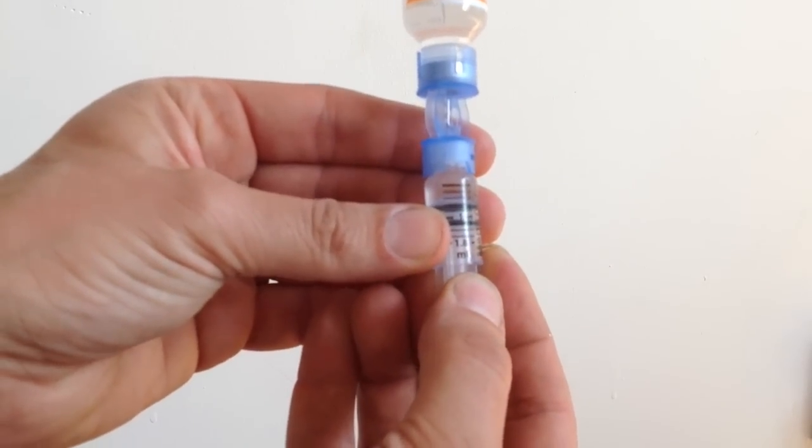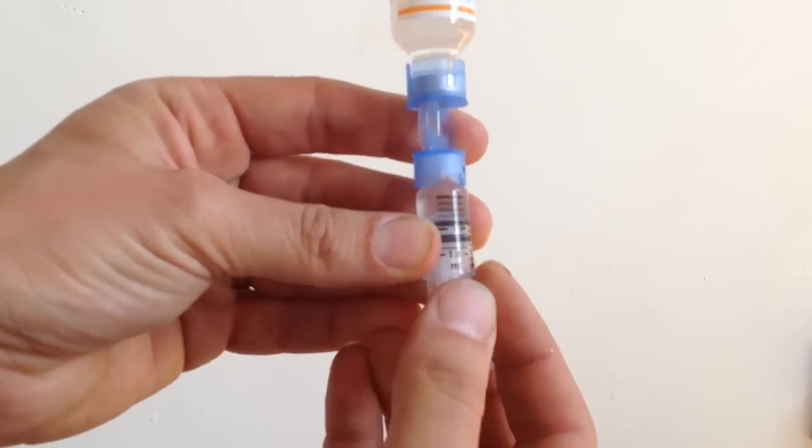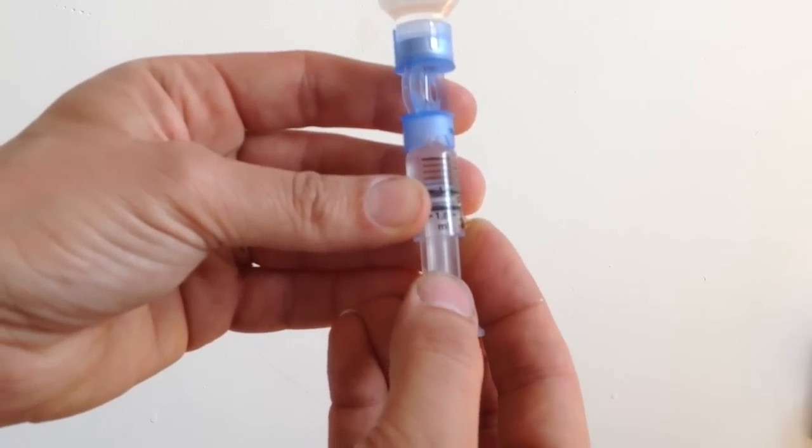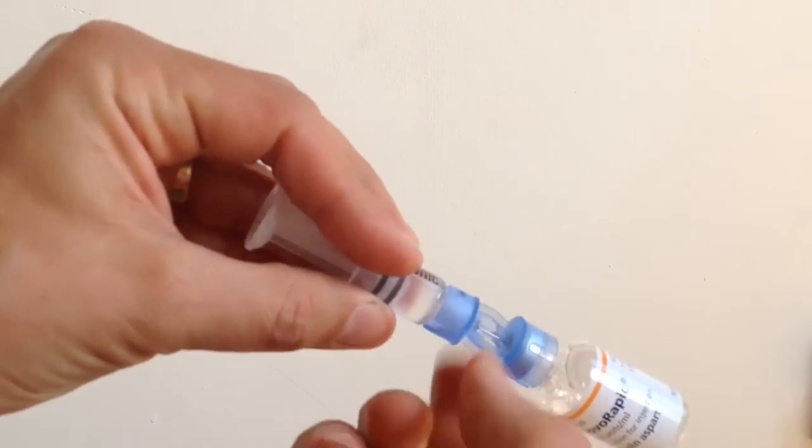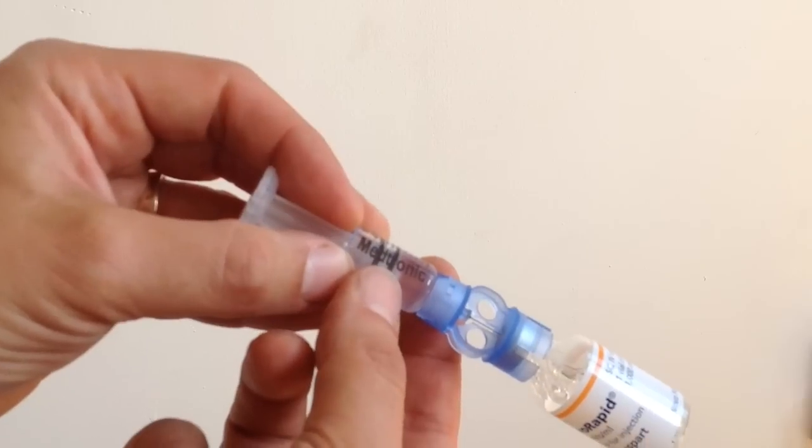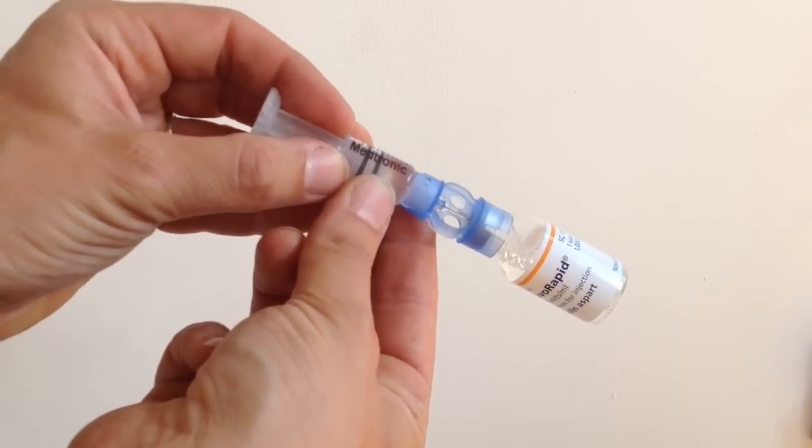And then, continue drawing up. There's a little bit of champagne bubbling happening at the top there, but it's not too bad. At this point, I'll just have a little look, give it a bit of a flick, and there's not a lot going on there. There is a bubble just there, I can see, which you may or may not be able to. I'll try and get it in focus.